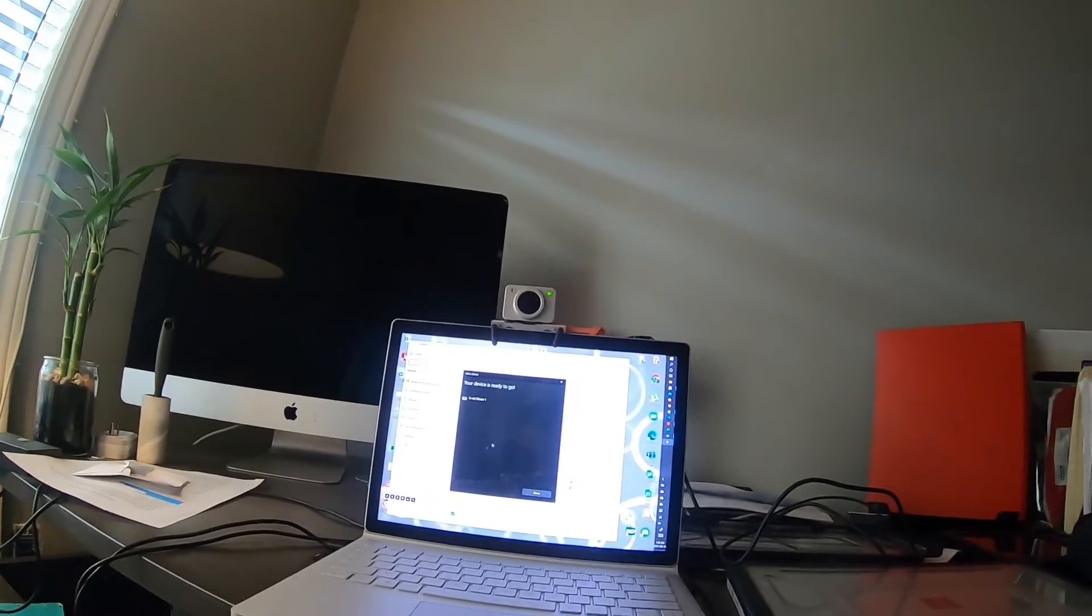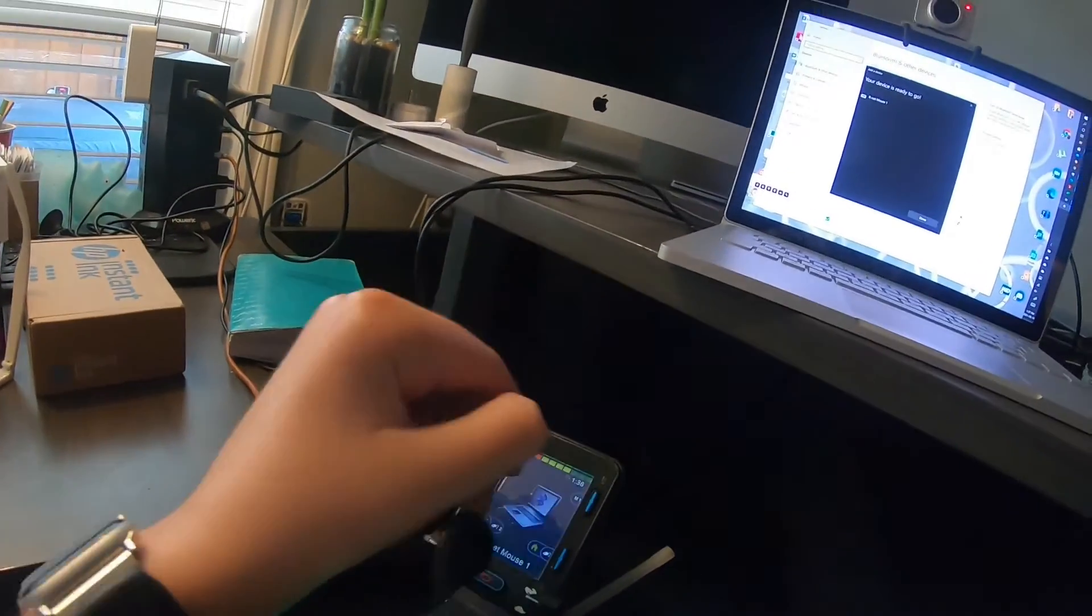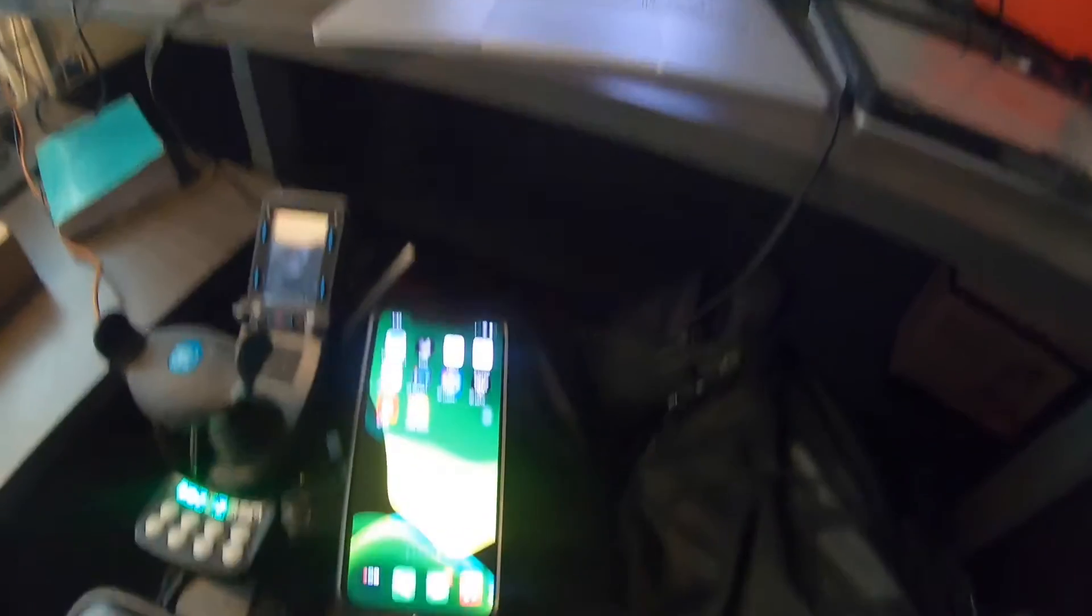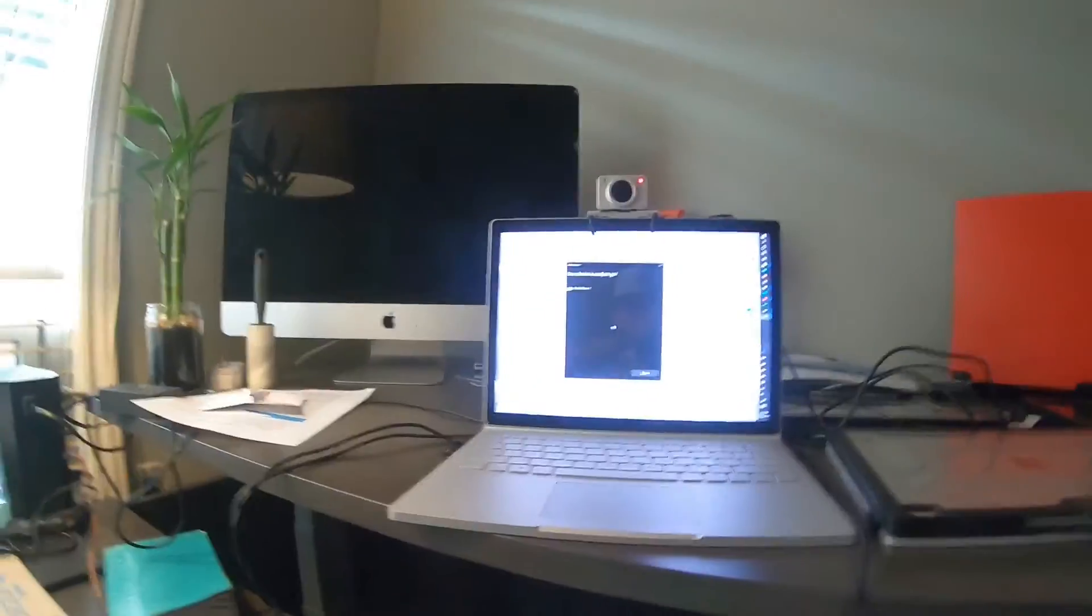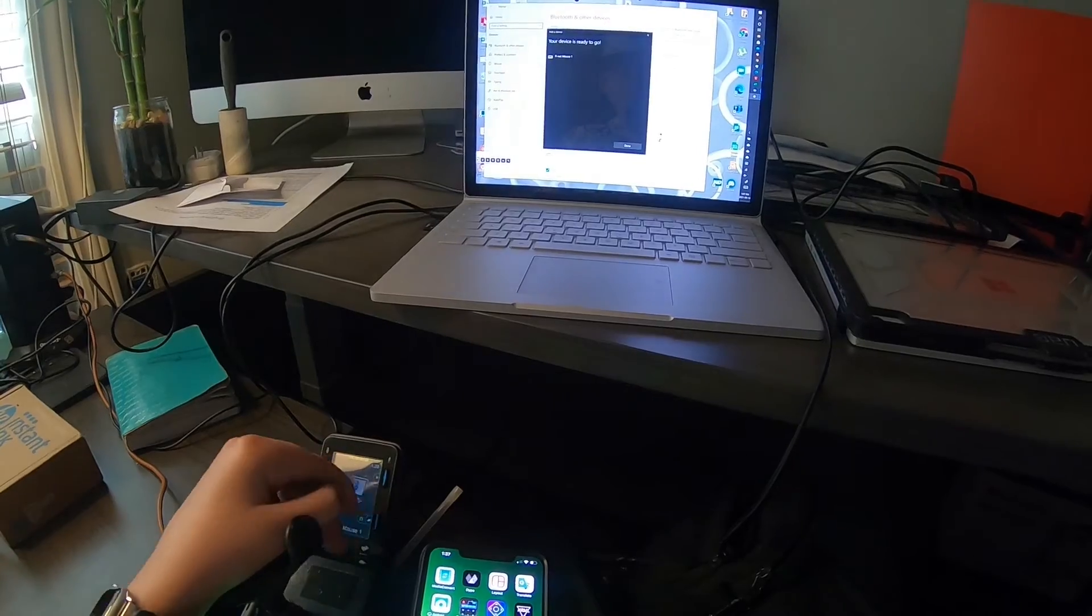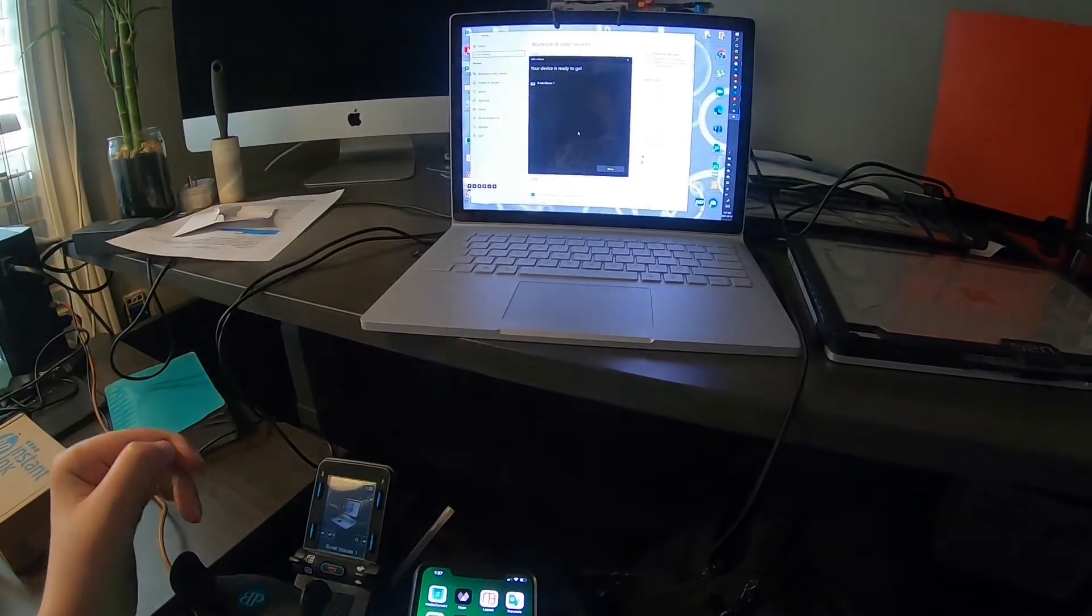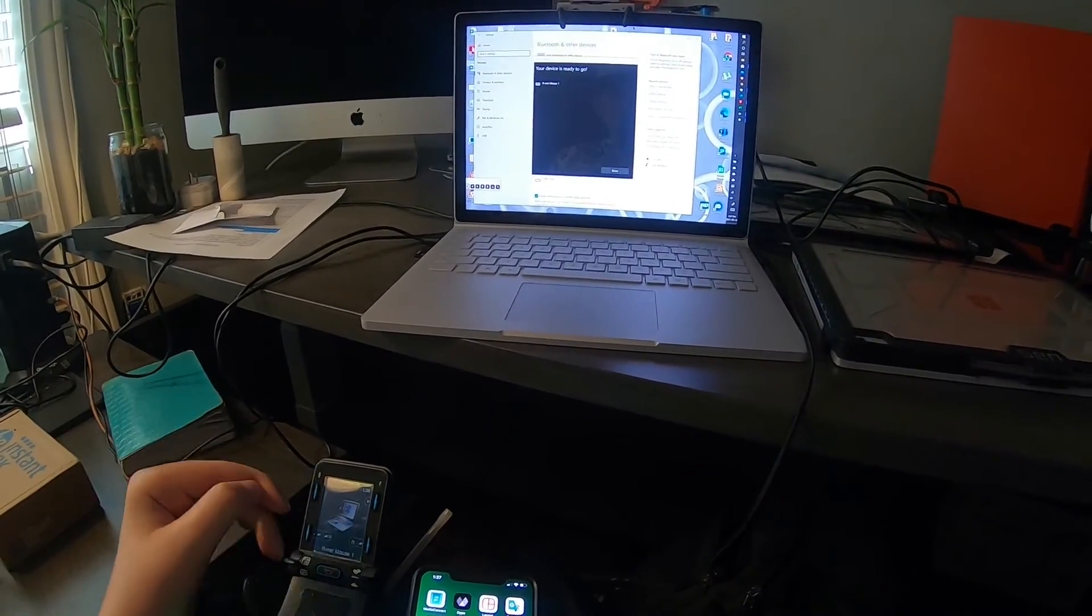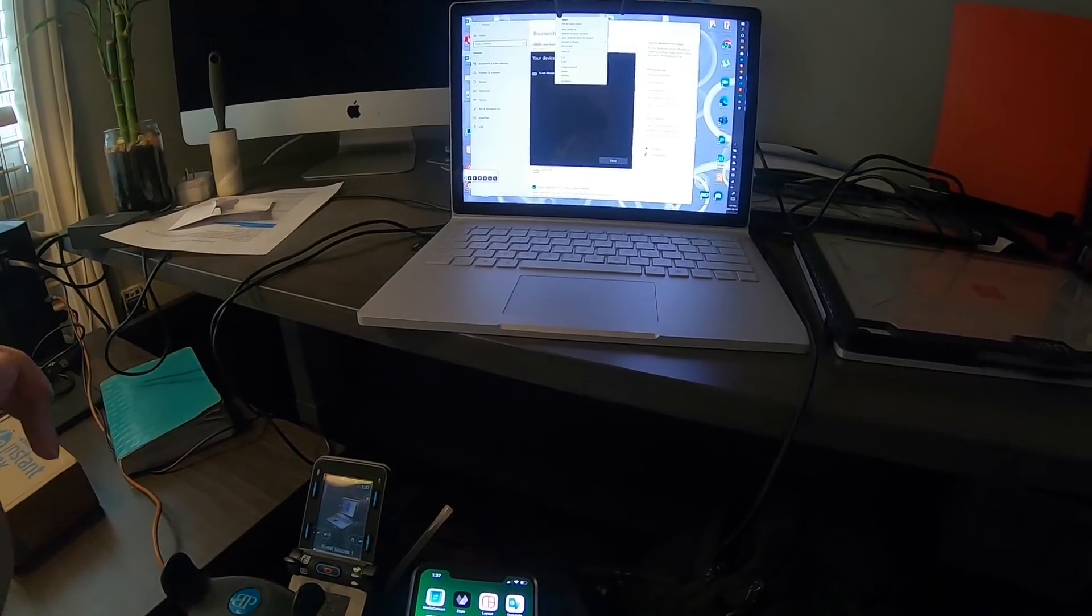So now I'm going to take off my head mouse glasses so that stops moving. And when I move this, it moves that. I'm going to try to get it both in the picture. I don't know if it was or not, but come on, GoPro, stop being... Alright. So I moved the mouse and yeah, I moved the joystick, it moves the mouse. And then when you go here and say your right click, right click, it opens that. And then if you do a short left, it left clicks. Left click, right click, left click, right click, and voila. And that's how it's done.